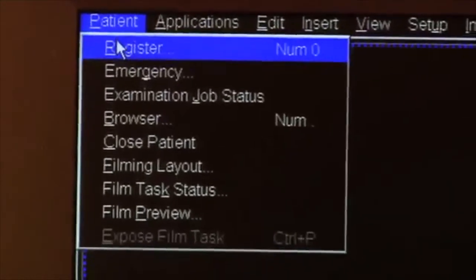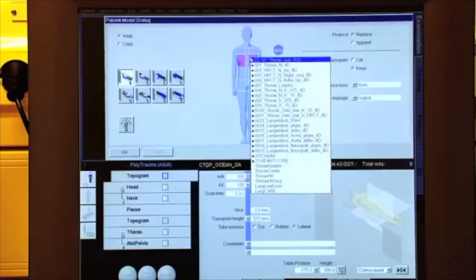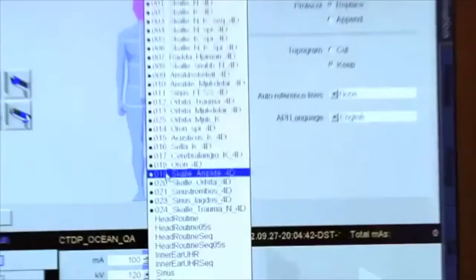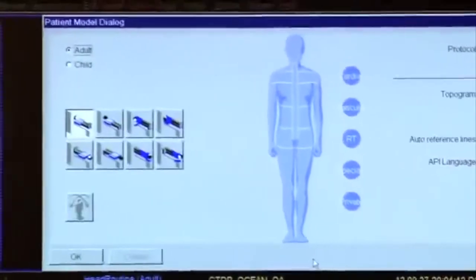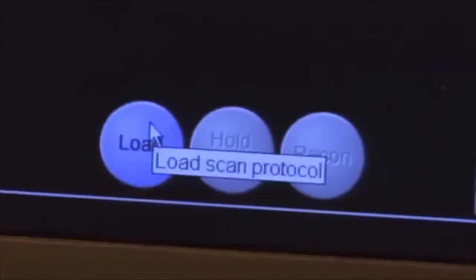To prepare for the measurement, you must first make a patient standard protocol based on the head or body, and then perform a scout of the phantom.